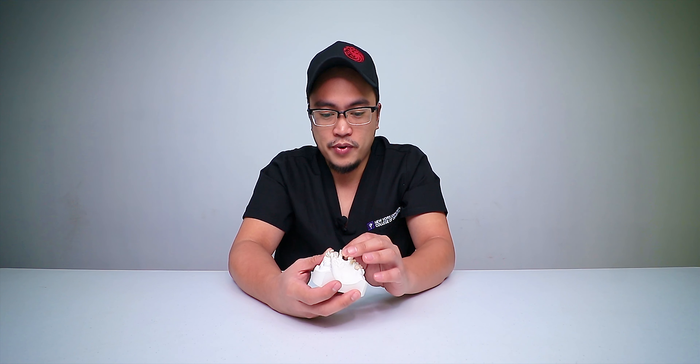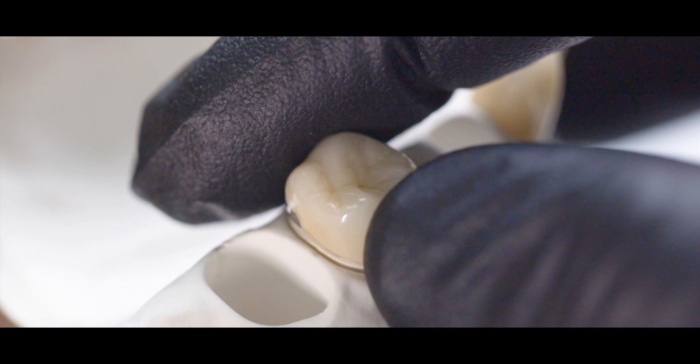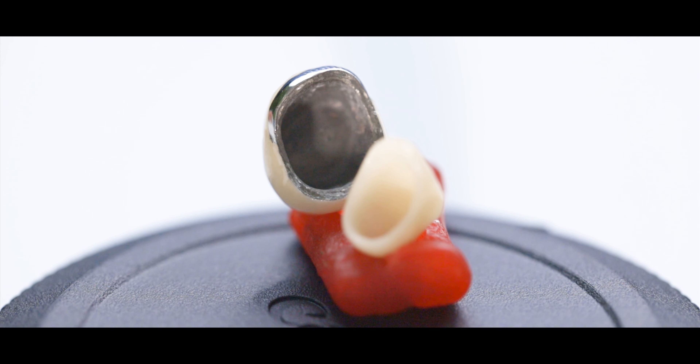Next to the crown and bridge we also have another crown sample. Most of the set is all-porcelain, and they have one molar in the back which is porcelain with metal. I love that they included a single-unit porcelain-with-metal piece because the comparison becomes easier. You can say, 'Here's an all-porcelain crown and here's a porcelain-with-metal crown.' Almost 90% of the time, once patients see the metal, they shy away from it and ask how much more the all-porcelain crown costs.